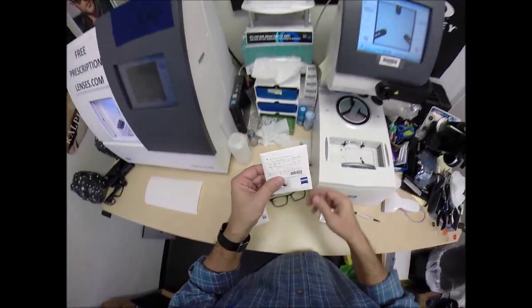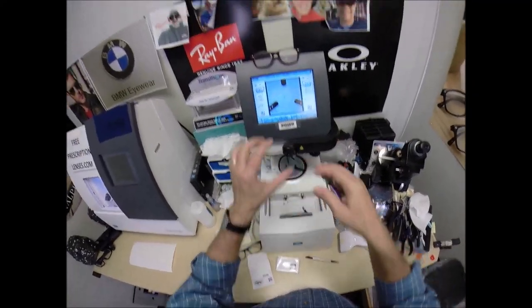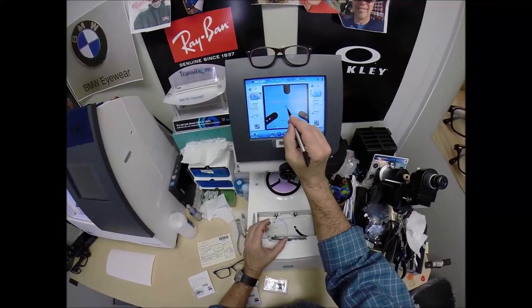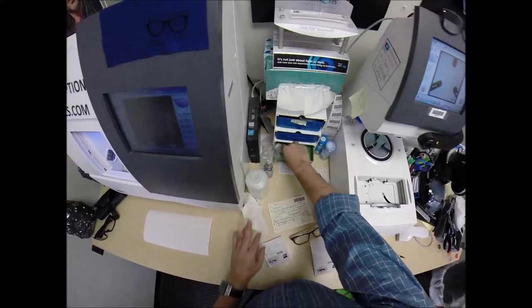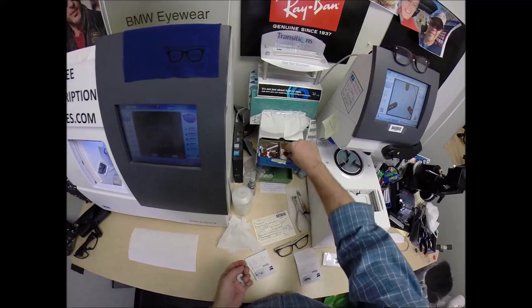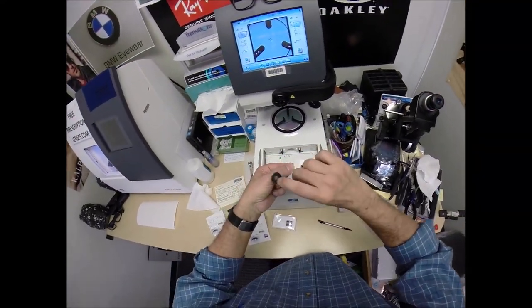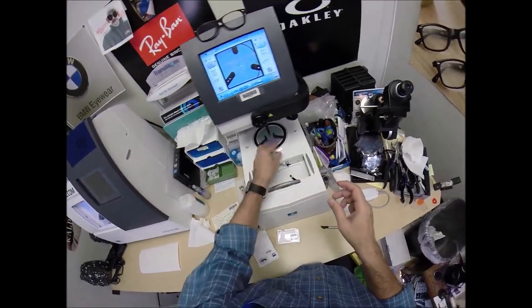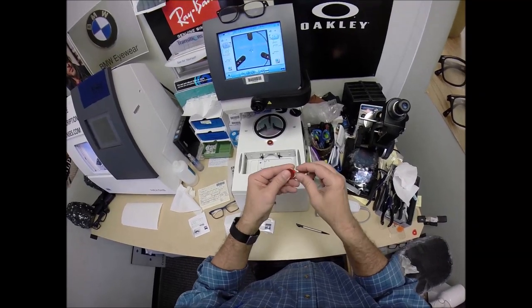Let's go ahead and take your lens out. It's already been prepped — the dots on there tell me where to orient everything. The blue cross is the geometric center of your frame, and your eye is just above that in inset. But first I need a couple blocks — or as I like to call them, Jenny from the block — and I need to attach two double-sided adhesive stickers to those. The black side is the sticky side. I'll put one on the first block, then do the same for the second.